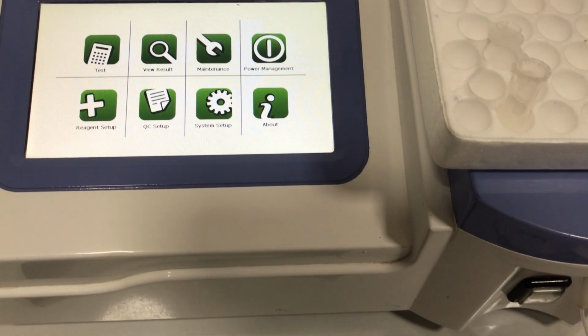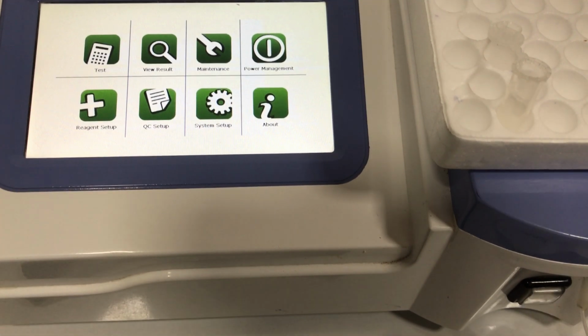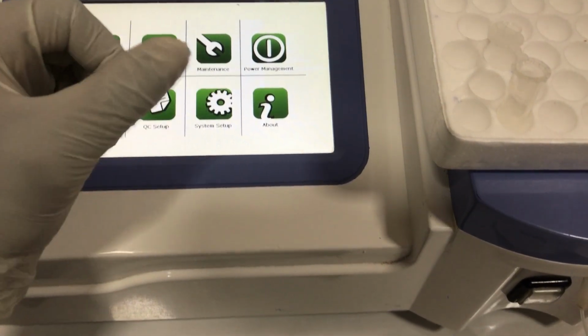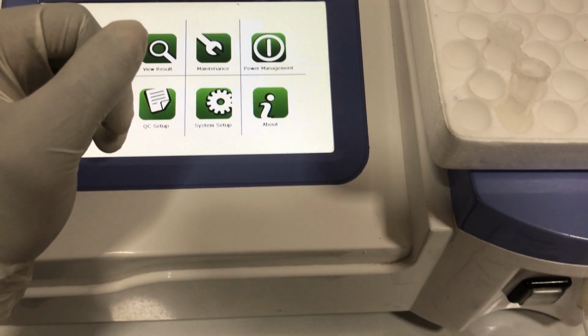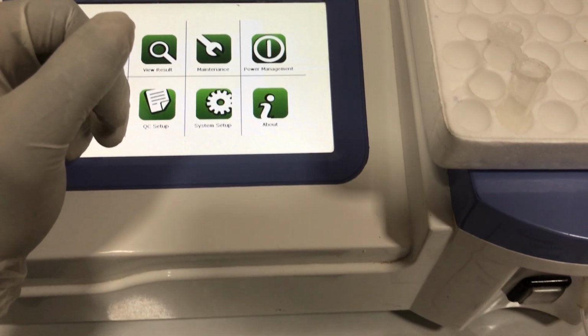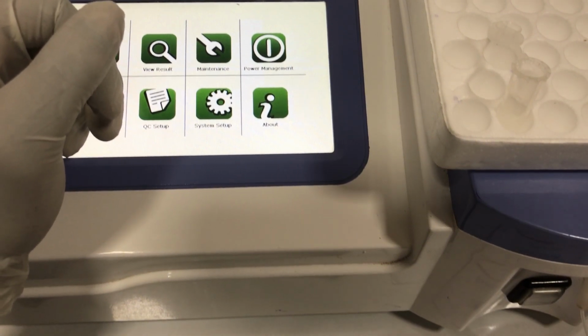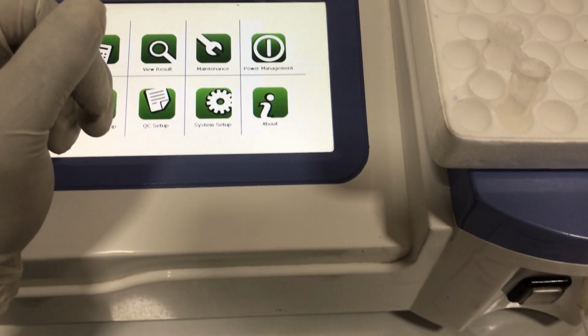And so we measure creatinine mainly to assess your renal function, because after creatinine has been produced from creatine phosphate, it has to be excreted out of the body, and it's done through the kidneys. And so if the kidneys are working properly as they should, then they should be able to eliminate most of the creatinine in your blood. Okay. As I already said, we're going to use two different reagents, and they are basically the same.